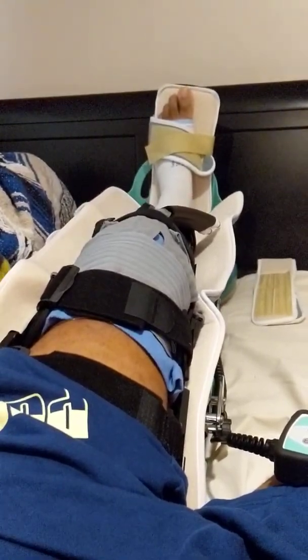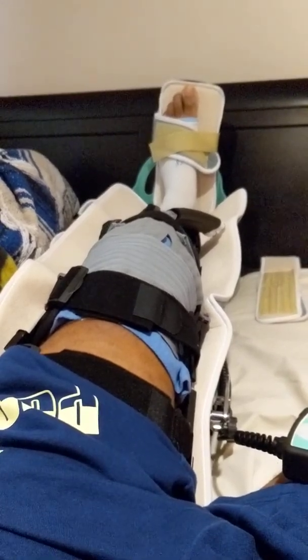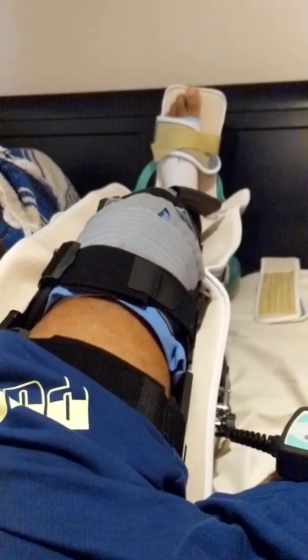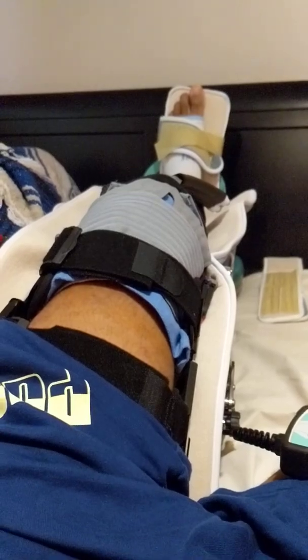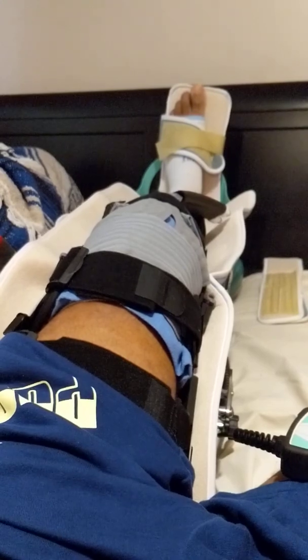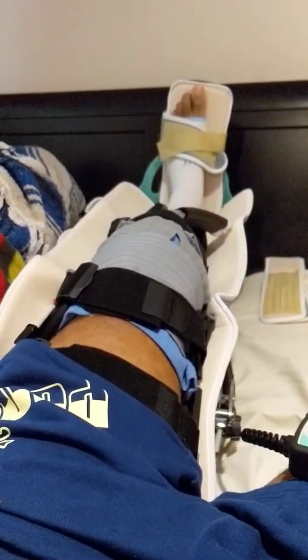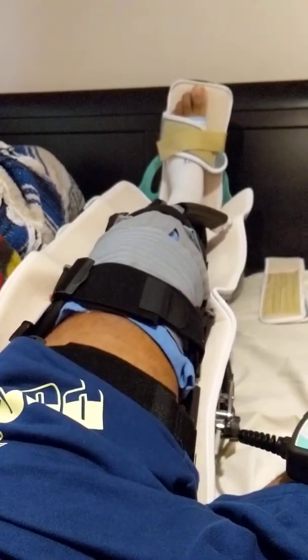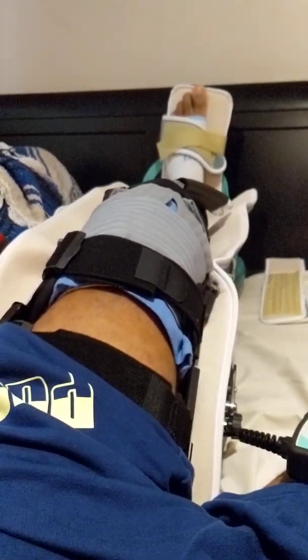Basically, it just passively moves my leg back and forth. It also increases blood flow, which brings more vitamins and nutrients to the damaged ligaments and cartilage, like I've said before in a previous video. These areas get very little blood — they're not made for blood. The tendons and ligaments are actually much stronger than the muscle, so they're much harder to damage.